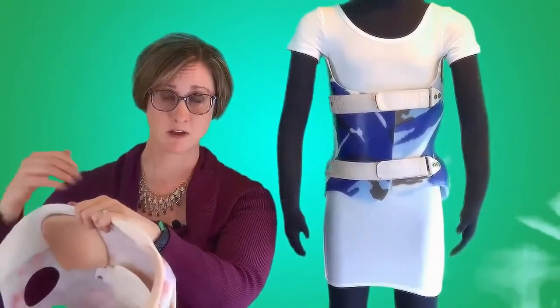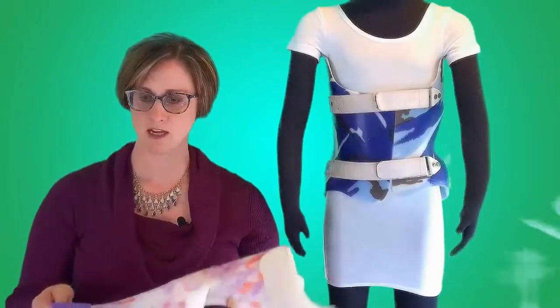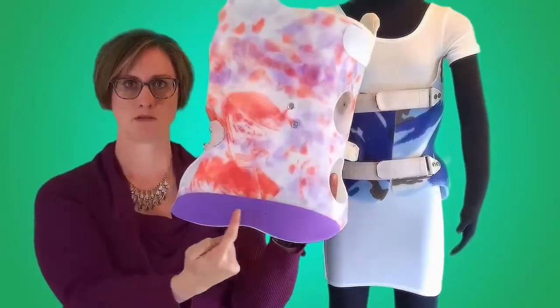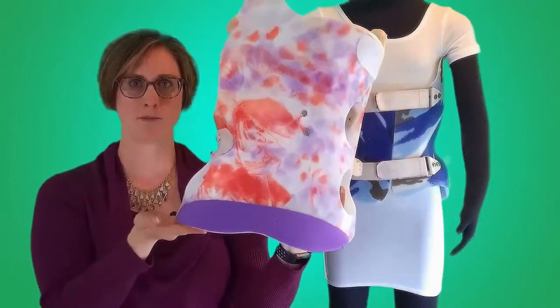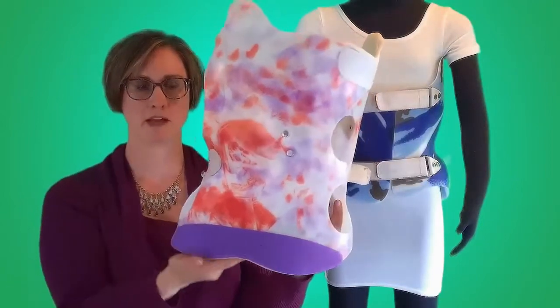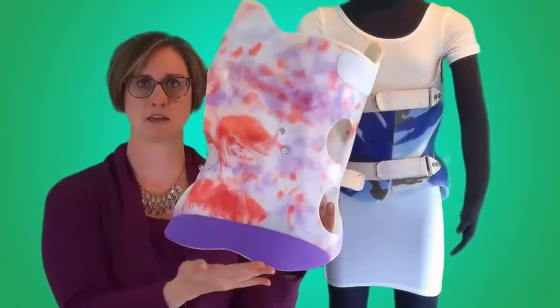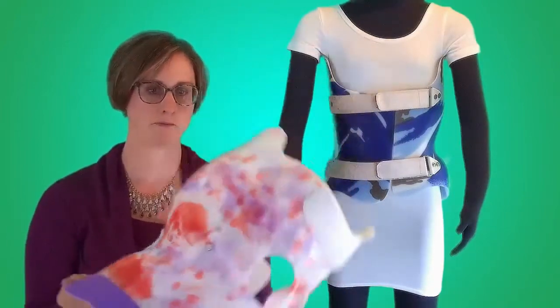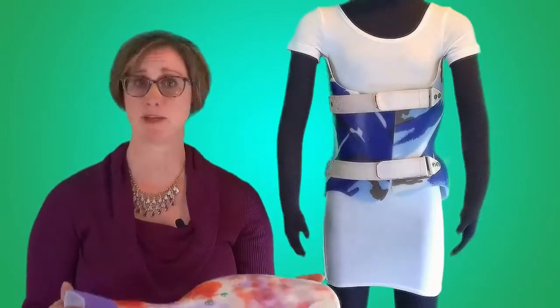It also helps keep your armpit more comfortable. He would also adhere a strip of it along the bottom and up around the edge so that there wasn't any plastic being pressed against my child's clothing, whether it be a t-shirt or outerwear.